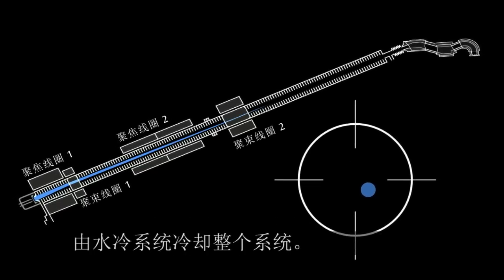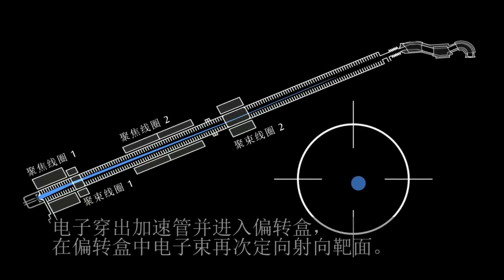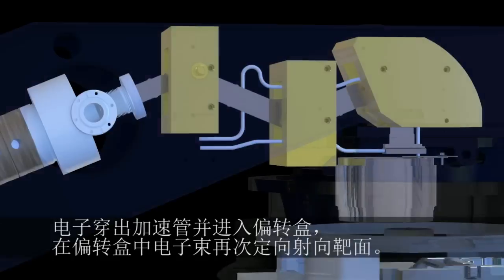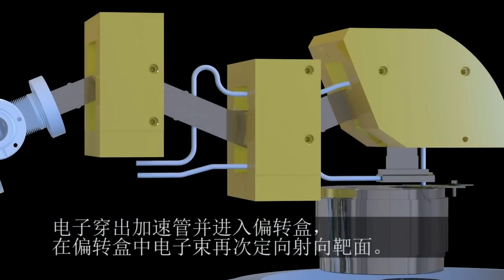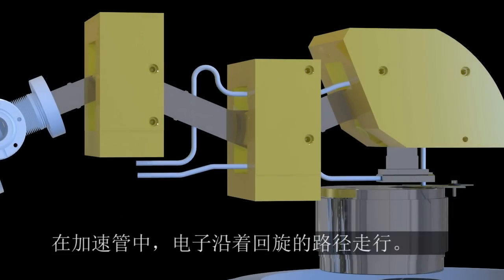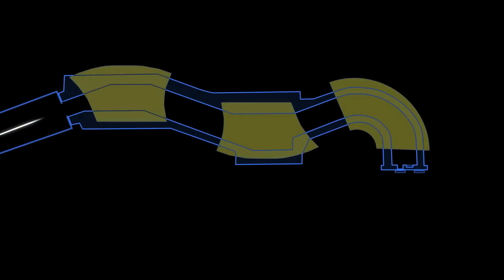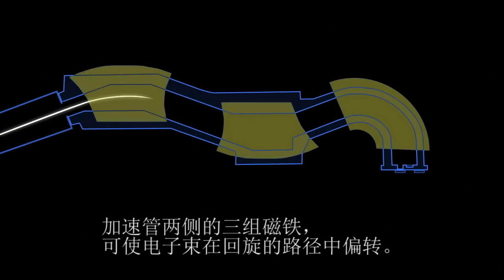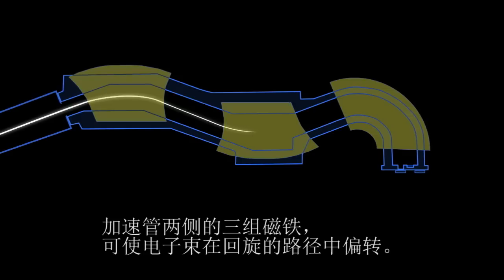The entire system is cooled by water. The electrons exit the waveguide and enter the flight tube, where the beam is redirected towards the target. The electrons travel along a slalom path within the flight tube. Three pairs of magnets on either side of the flight tube cause the electron beam to bend through the turns of the slalom.